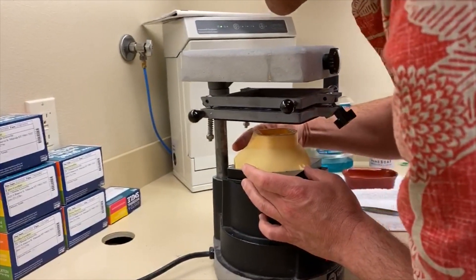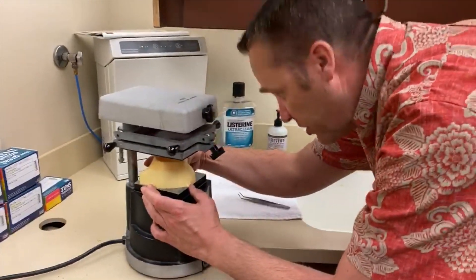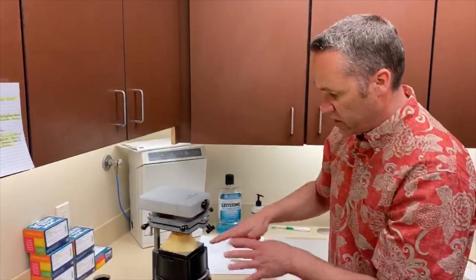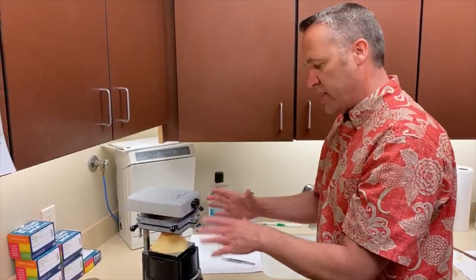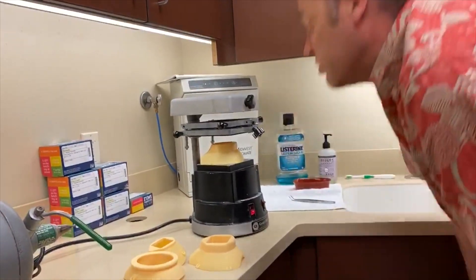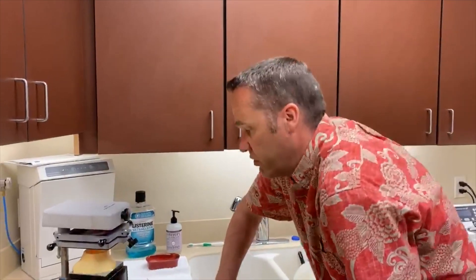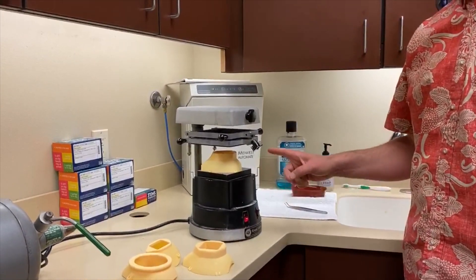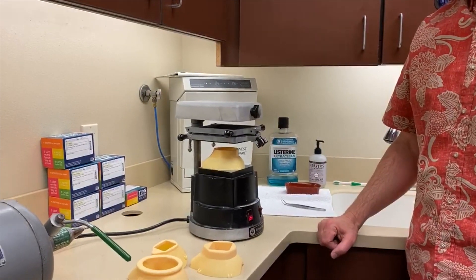You have to get this positioned. Part of what we had to adjust was the vacuum-down setup — the plate is only so big, so we had to adjust the back so it could lay flat and adjust the size so it fits on this tray. Then we let this heat and soften this plastic mouth guard material, and we're going to droop it over this form. That's why instead of taking two hours we can make a mouth guard in about 15 to 20 minutes.